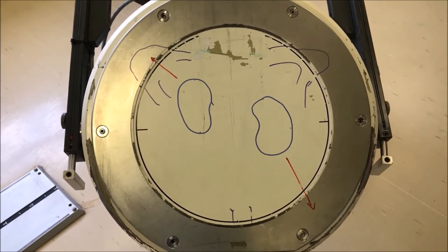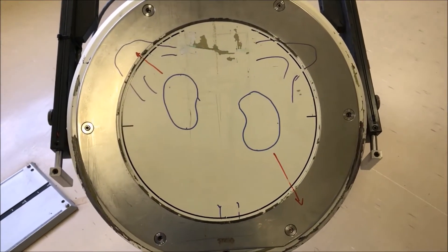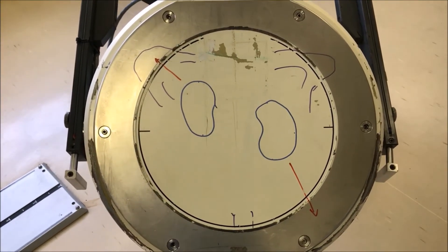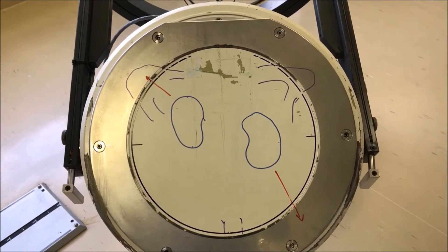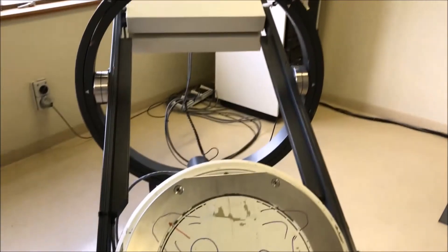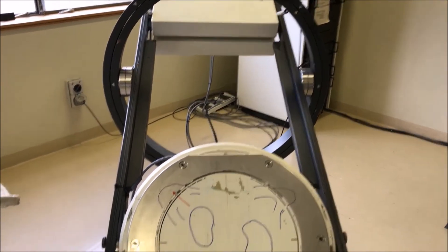This is actually called a 40-centimeter field of view — it gives you a really good size but you can't fit an entire body width-wise. You couldn't get shoulders in; the pelvis would be hard to get in. There are smaller versions — 30-centimeter fields of view using the same round system, used for pediatrics — and slightly bigger versions at 500 millimeters (50-centimeter field of view) useful for whole-body imaging. The next version had rectangular fields of view — about 40 centimeters by 50 centimeters — which allows for much better whole-body imaging, though the limitation of sitting out on an arm, giving variable gantry stability, remained.